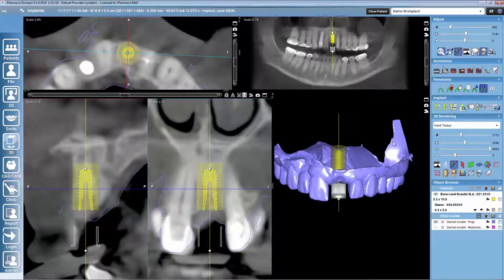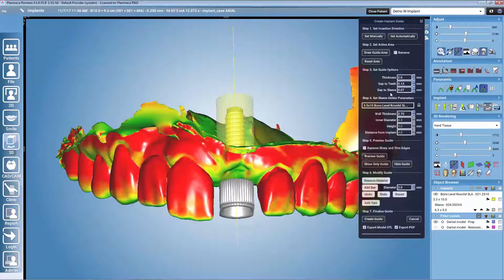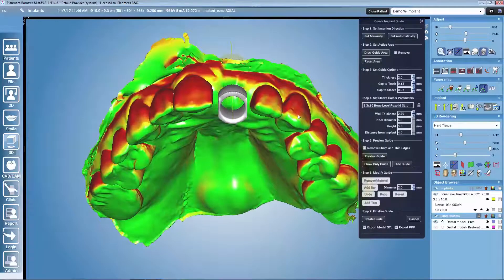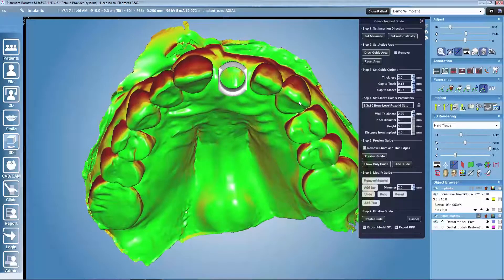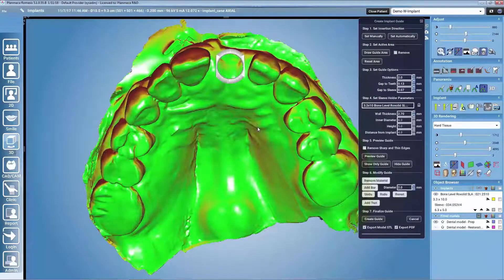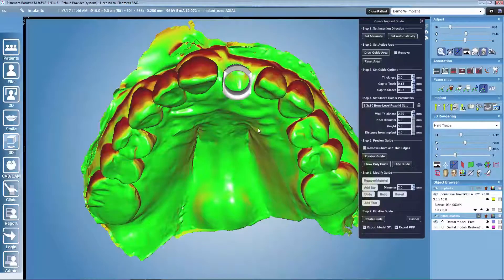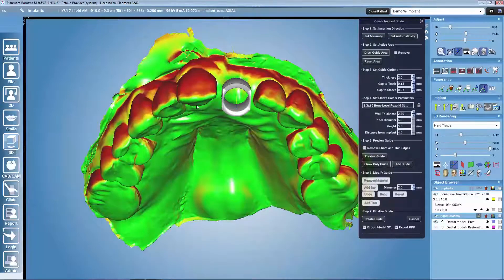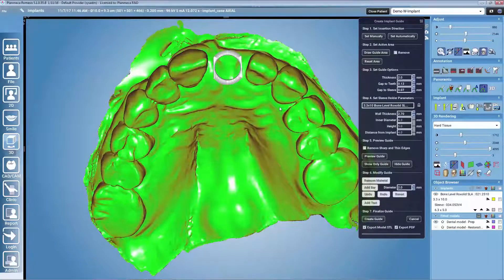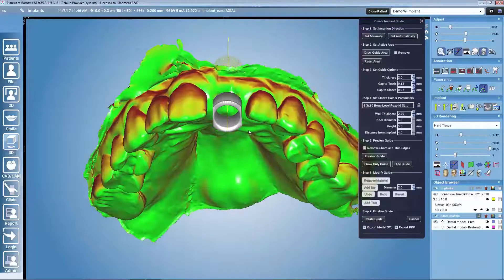After having the implant and the sleeve well in place, we can move to the implant guide designing. The implant guide designing is a very easy workflow — we start from step one and move downwards. The first step is to set the insertion direction, which affects how the guide will sit on the patient's teeth. We want it to sit so that it doesn't fall over to the buccal or lingual side, so we must check that we have contact points for the guide equally on both sides. The contact points are the green areas and the red areas are undercuts, so I rotate the model and set the insertion direction manually.